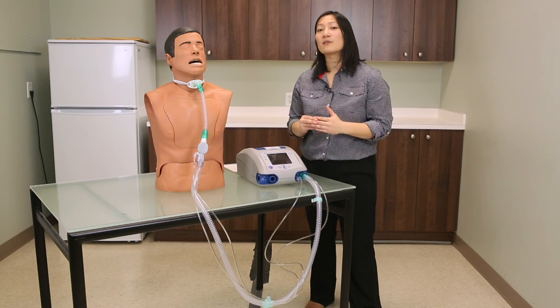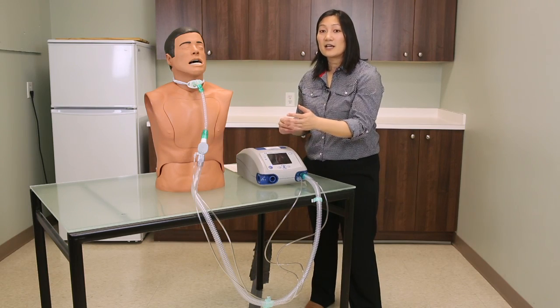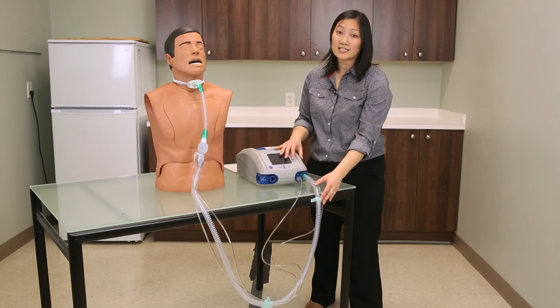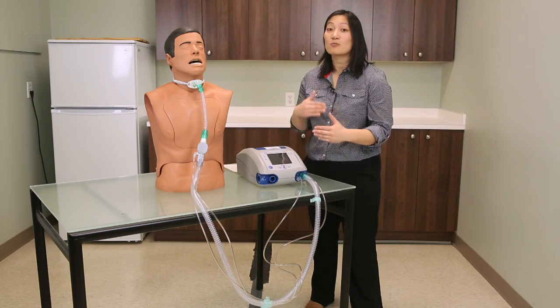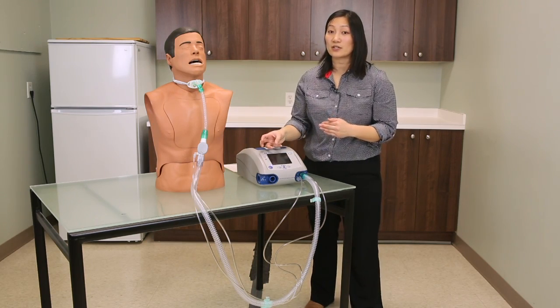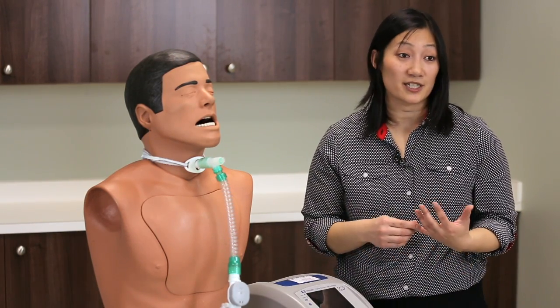For example, if the ventilator alarm is appropriately set and the client is disconnected, the machine will attempt to pressurize the circuit and will not be able to do so. After three to four consecutive breaths being delivered through the circuit, the ventilator will visibly and audibly alarm, suggesting an alarm situation and likely a patient disconnect.